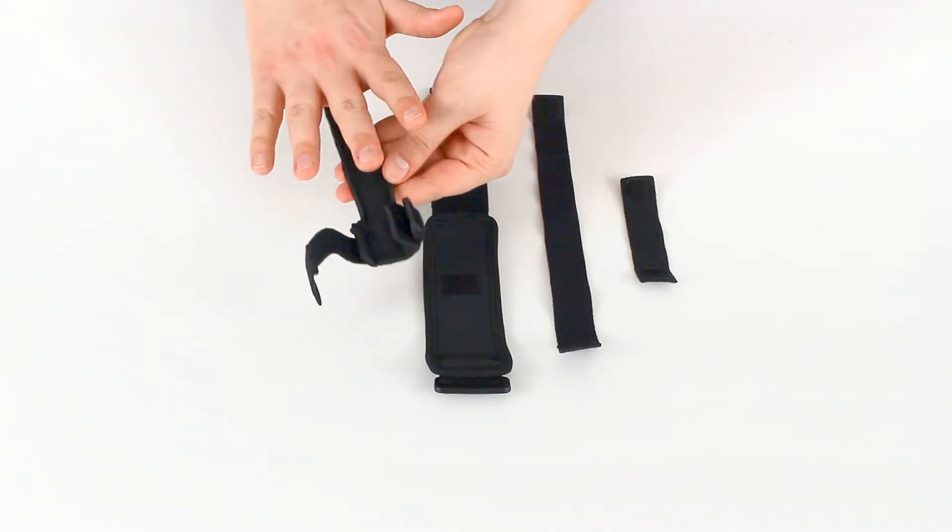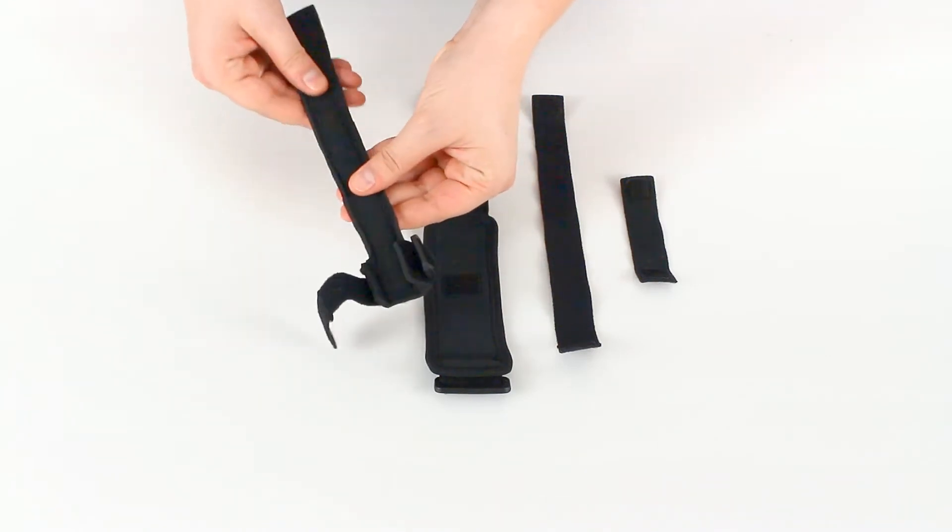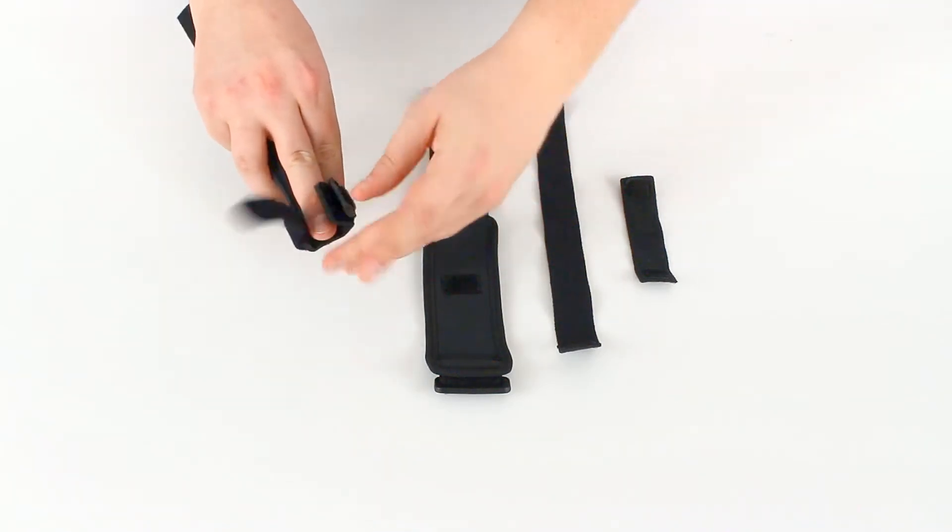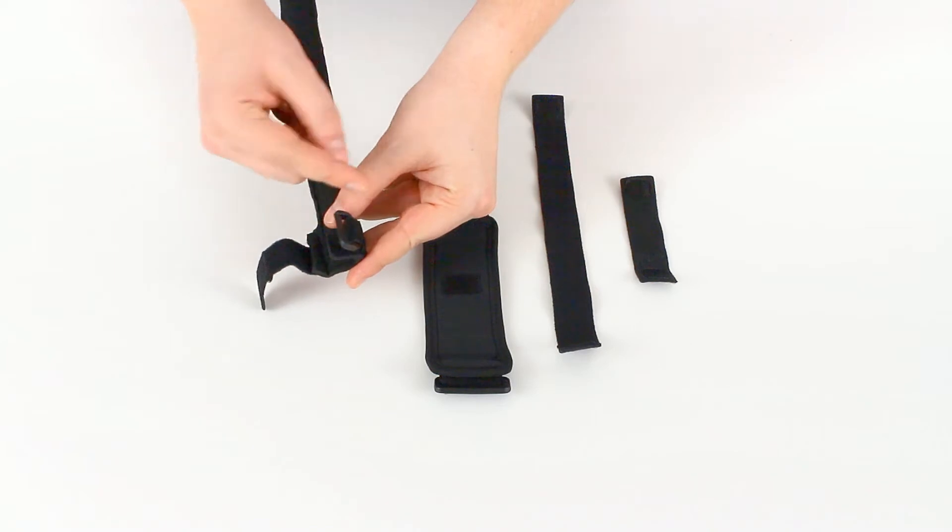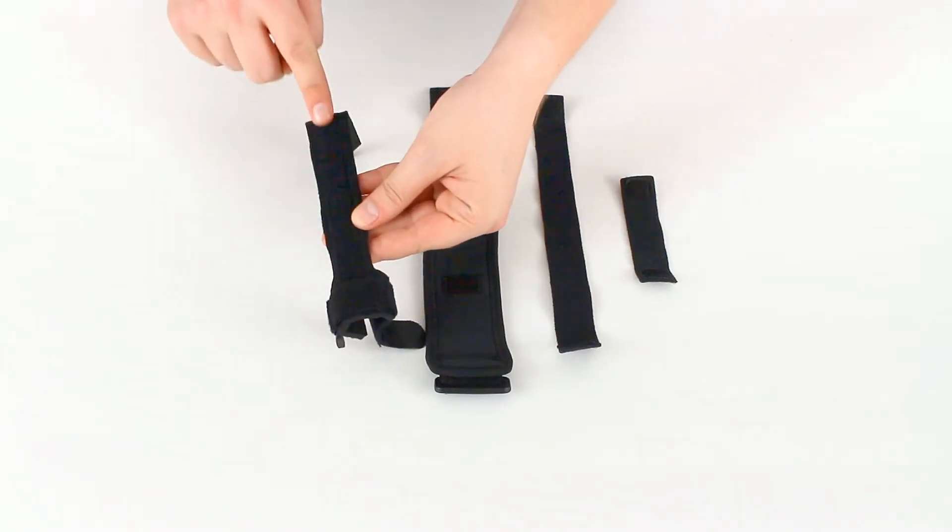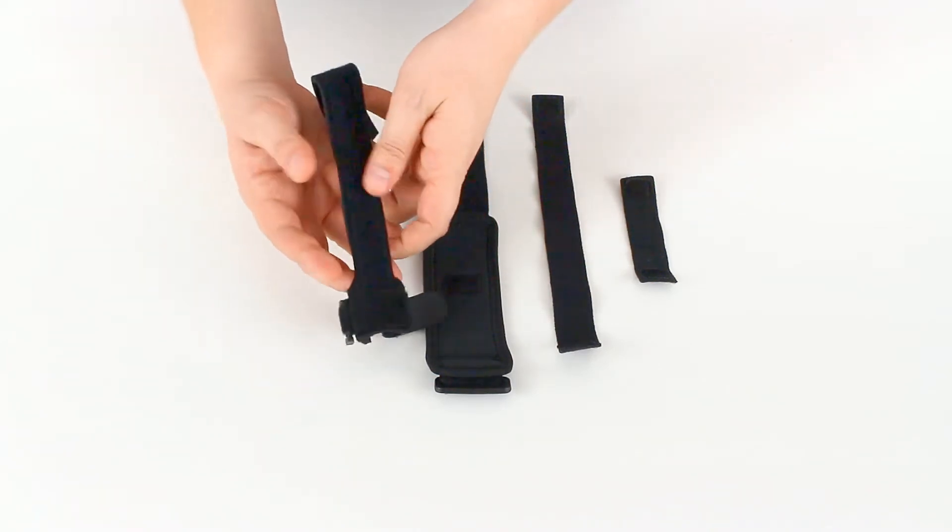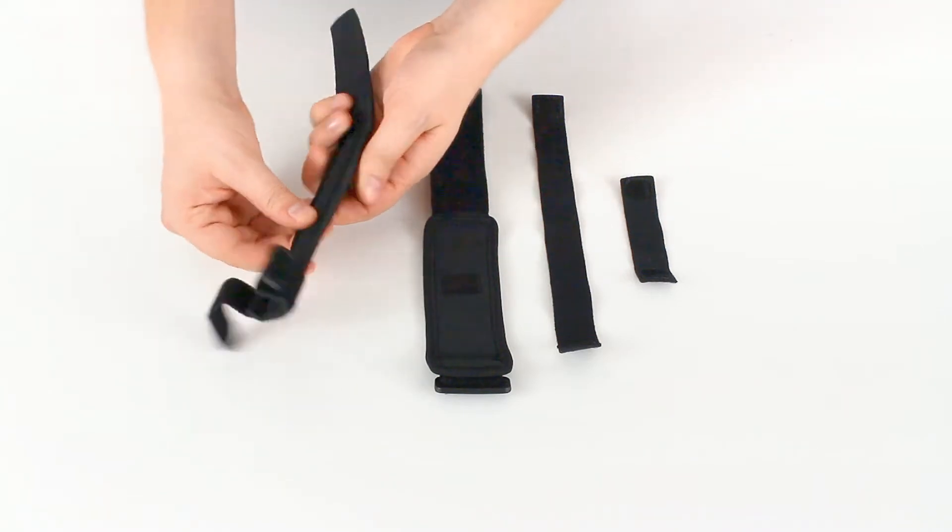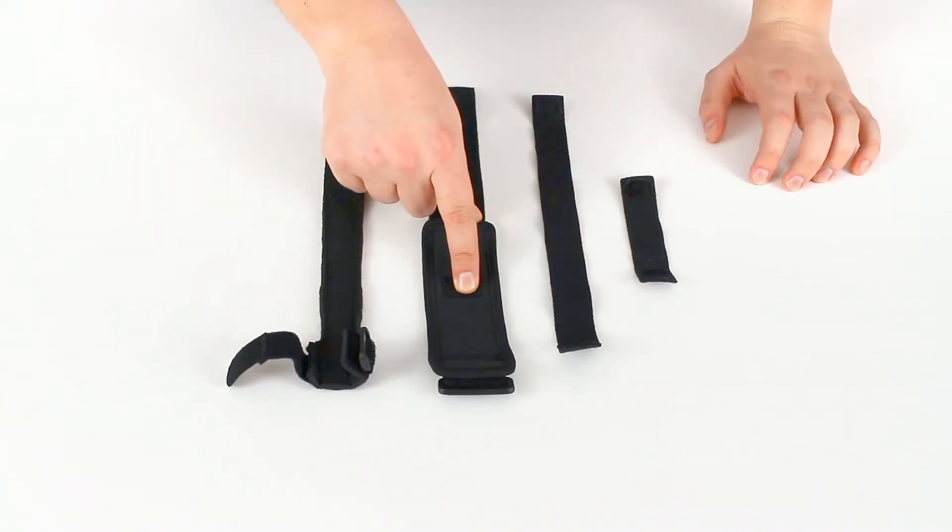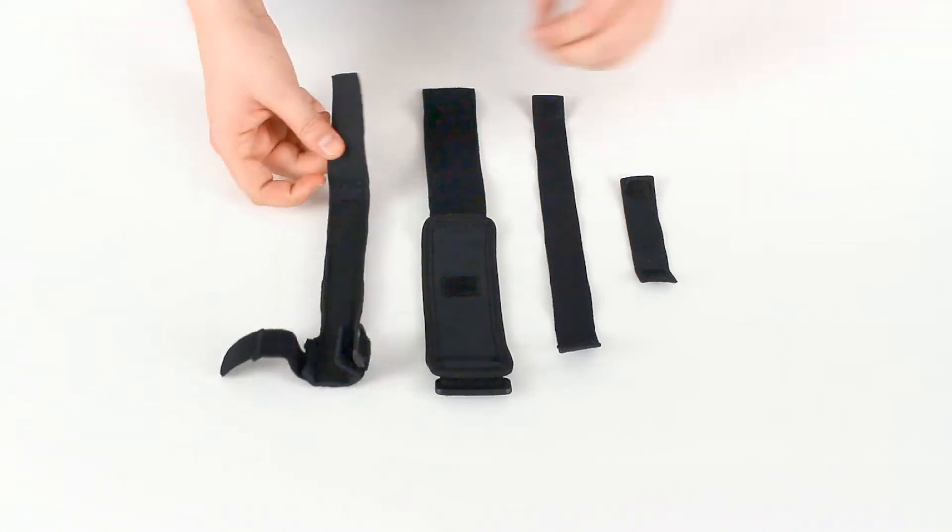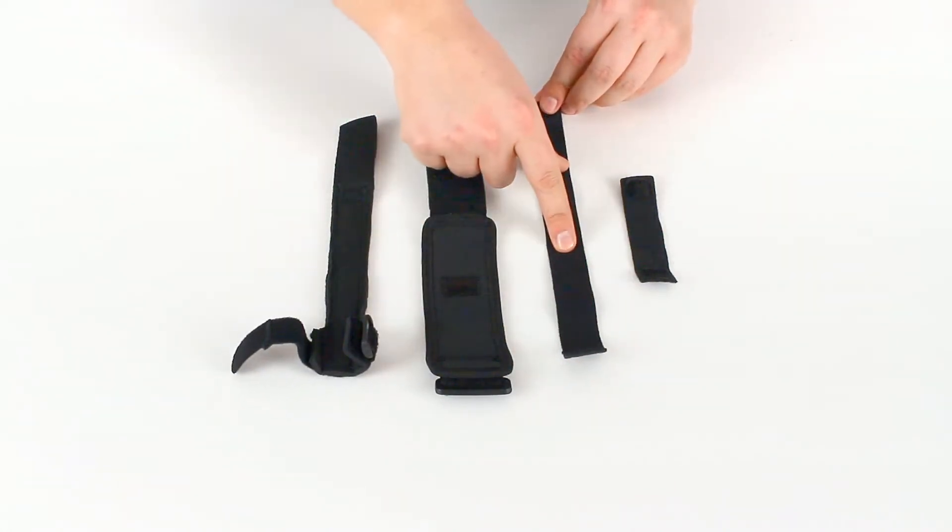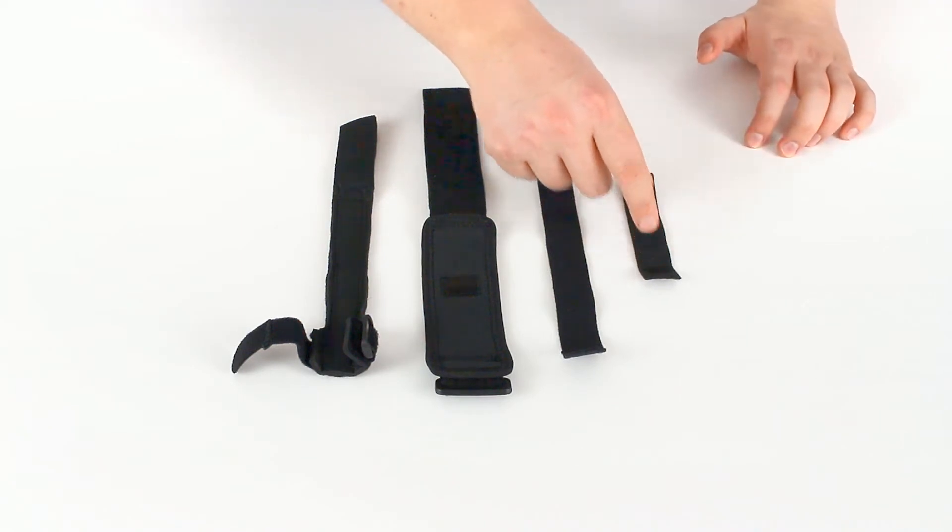Your hand, your palm will go against the smoother side of the material so that the loop can go over the tip of your finger that way. It goes through the ring and back over. The rougher side will face out away from your palm and this is what the velcro will attach to on the wrist strap.